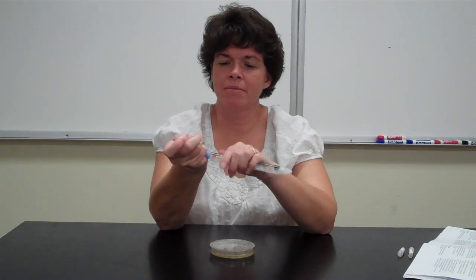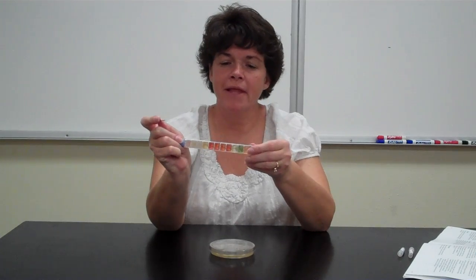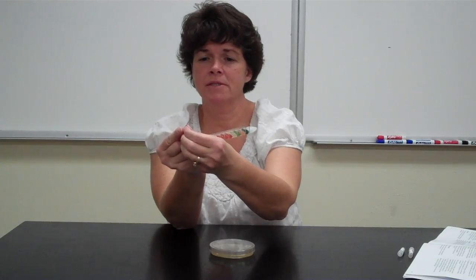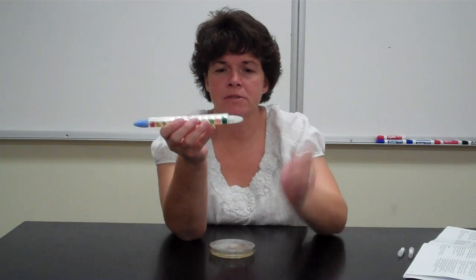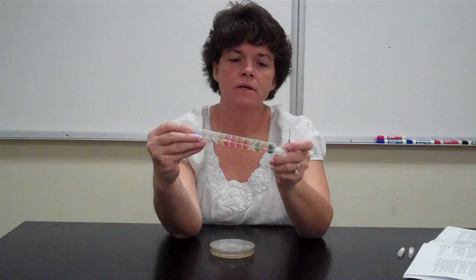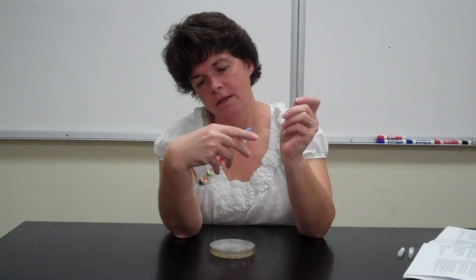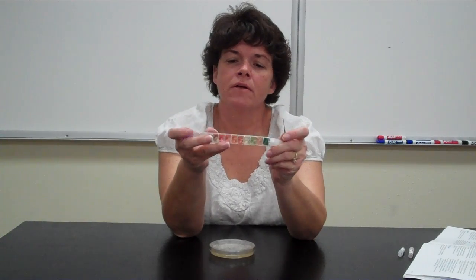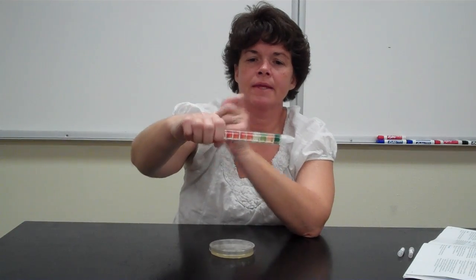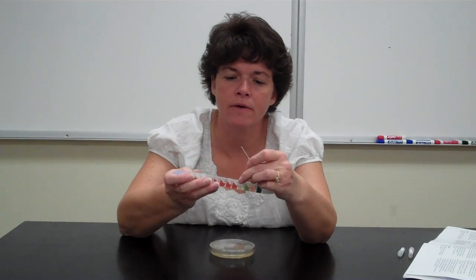Once again, I'm not working with any bacteria. It's all imaginary. Now, this is the part where it's different from the lab manual. The lab manual says remove the blue tape. Well, we don't have any blue tape on ours, but the goal is with this part that you've just broken off, on the compartments starting with citrate, all the way down to adonitol. So not these last 4 compartments here, but starting with this green one down to this red one. Notice that there are little notches right here.